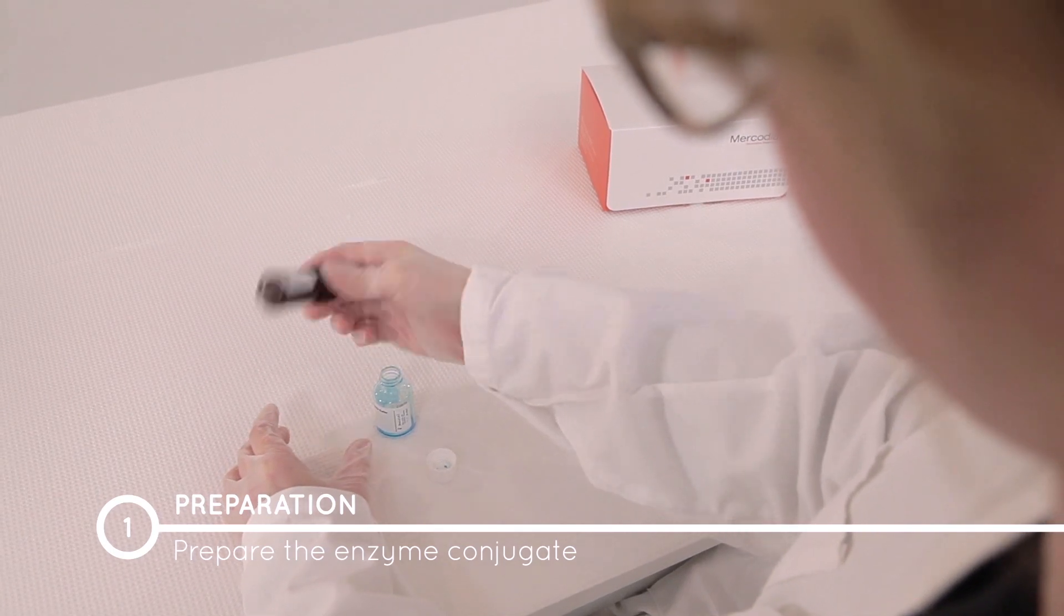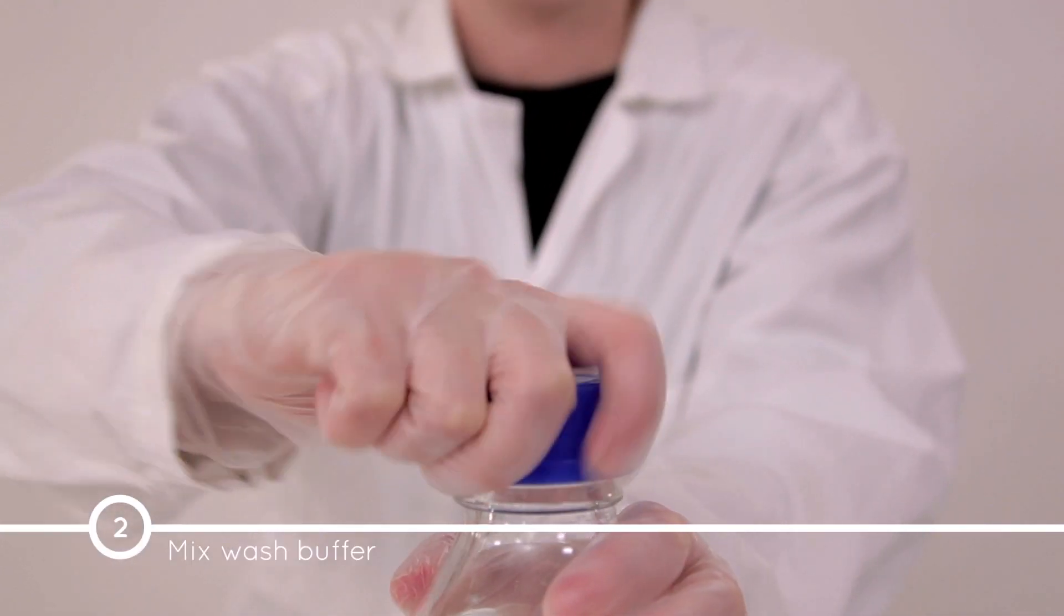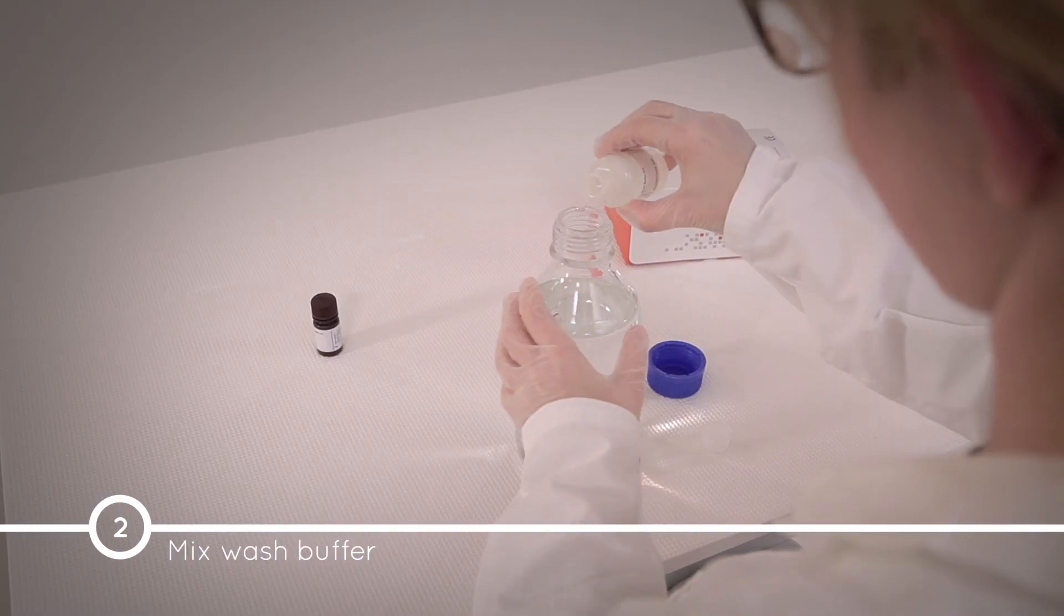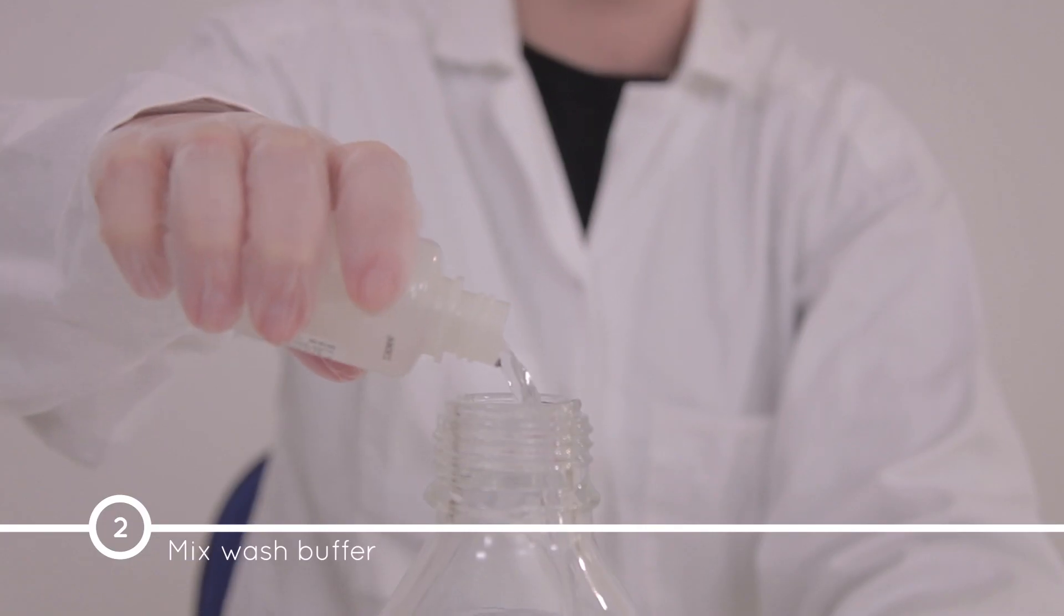Use the diluted enzyme conjugate within one day. Prepare the wash buffer according to the specifications in the directions for use and mix gently.